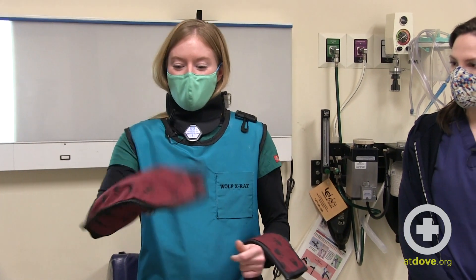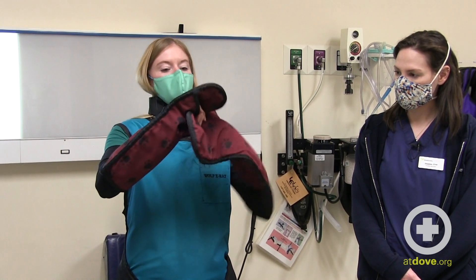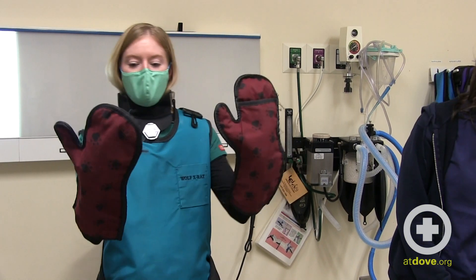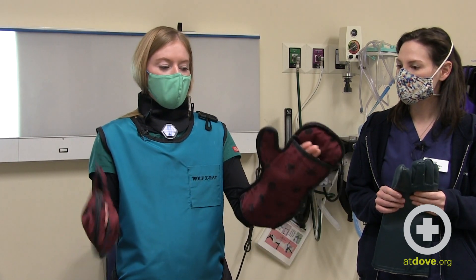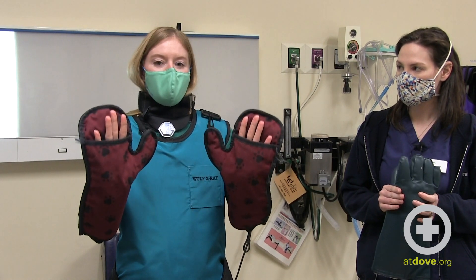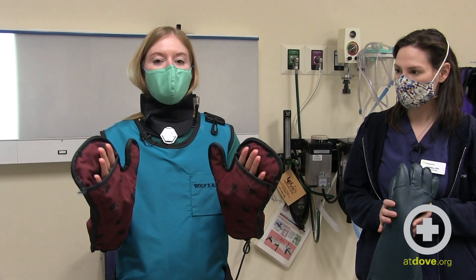There are a few different styles of lead gloves that clinics may choose to order. The ones that seem to be easier to manipulate and hold paws through are in mitten form. There are holes in the gloves that you can stick your fingers out for a better grip, but we're going to talk about why having your fingers out of those holes is not safe and not protecting your fingers, even though the rest of your hand is inside the glove.